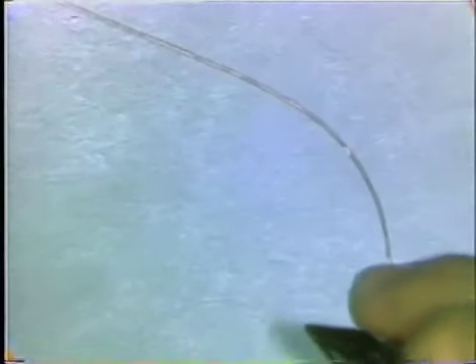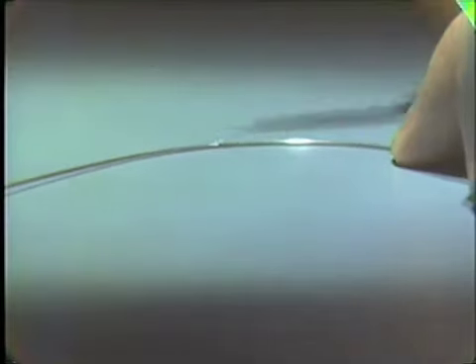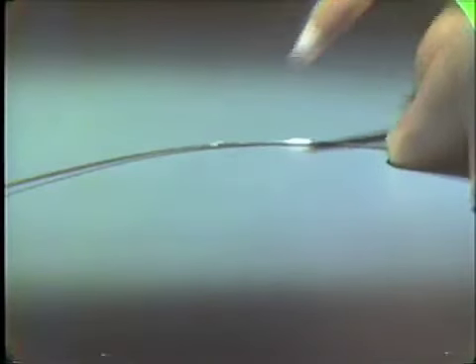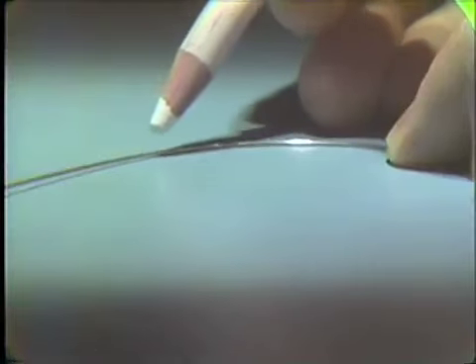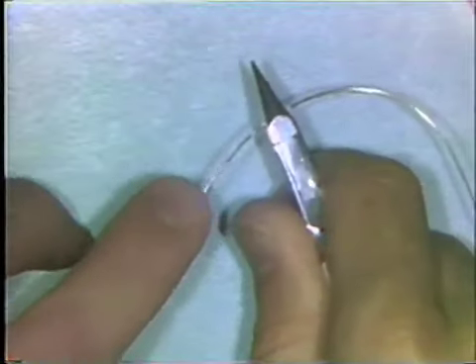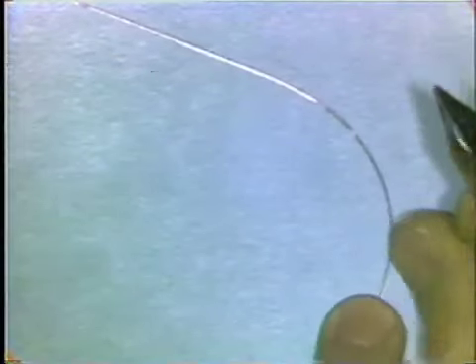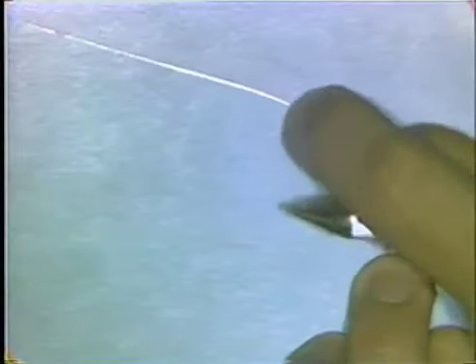You try the wire back on the table surface again and check the flatness. What has happened is that the adjustment has moved the spot where it leaves the table down a bit. You mark the wire again and place the wire in the beaks of the plier and make a small downward bend to adapt the wire to the tabletop surface. You continue making these adjustments until the curvature is completely flat and completely adapts to the formica surface or the glass slab.